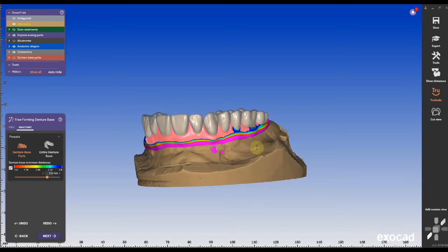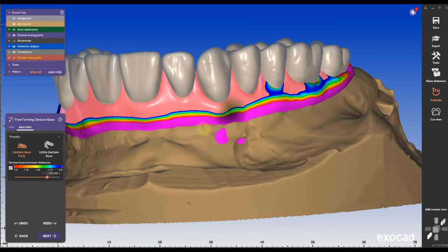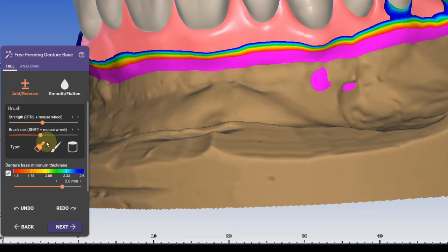I found it more aesthetic looking but it's also more time consuming because of the long milling time. Very important is to clean up parts of the tissue that are not connected with the main tissue design. If you have some floaters they will usually cause some errors during the adaptation step if the teeth are getting separated from the base.